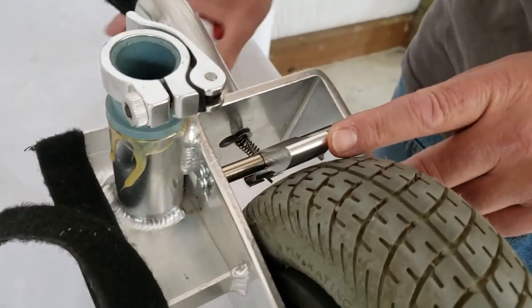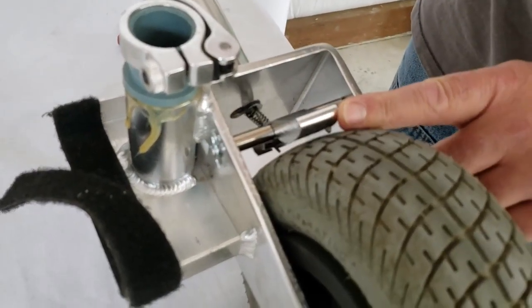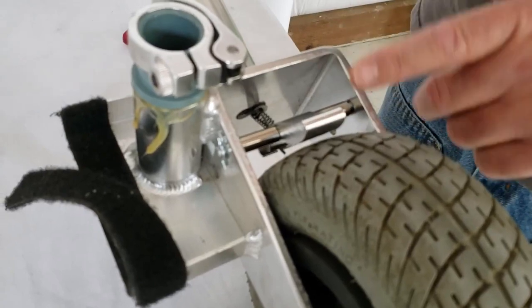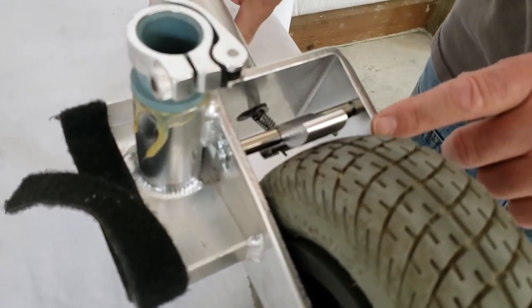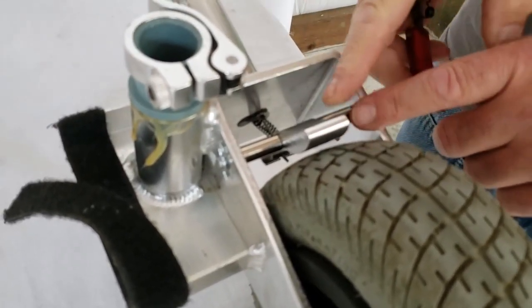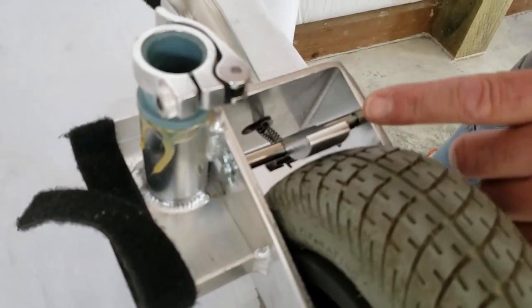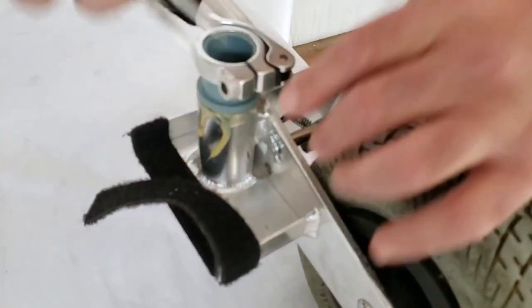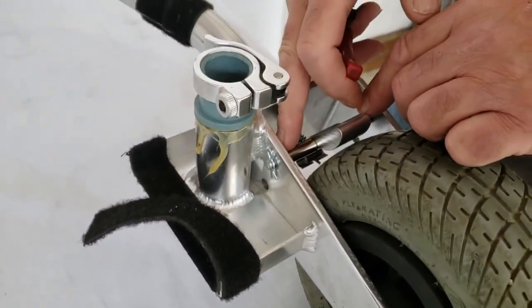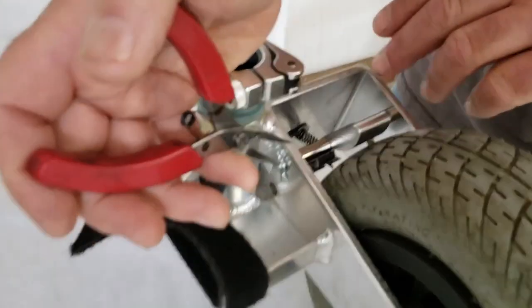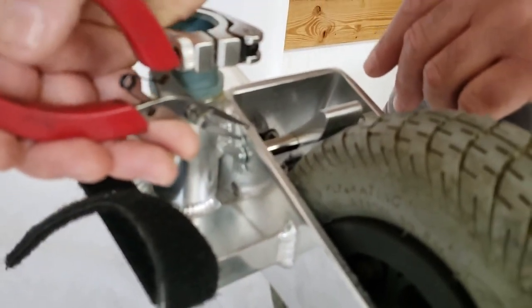You have a brake shoe that operates like a friction pad on the rear wheel. Left and right are the same, and this shoe is just held on an axle. I'll show you how this works. We're going to do the right side. It's essentially the same as the left, but there's a little less claptrap in the way, so this is more visible.